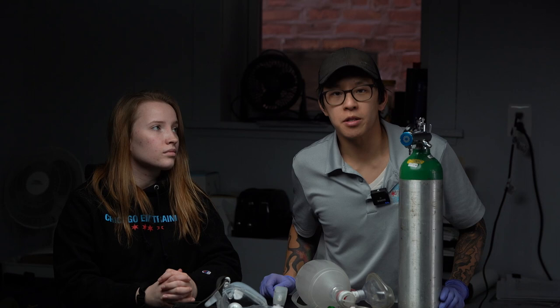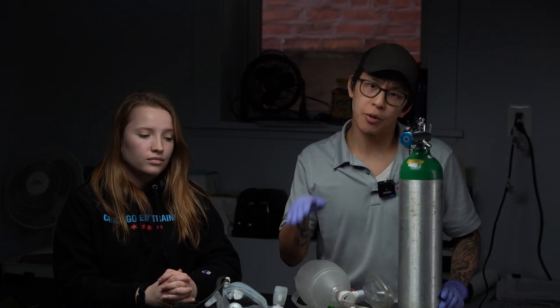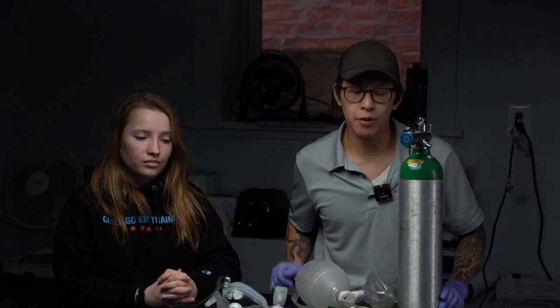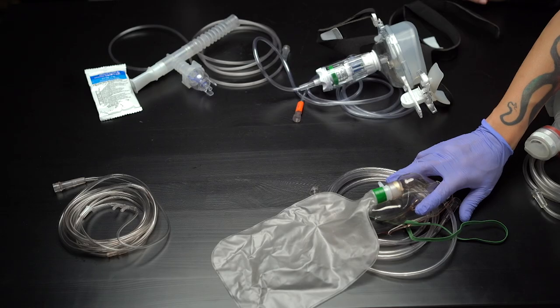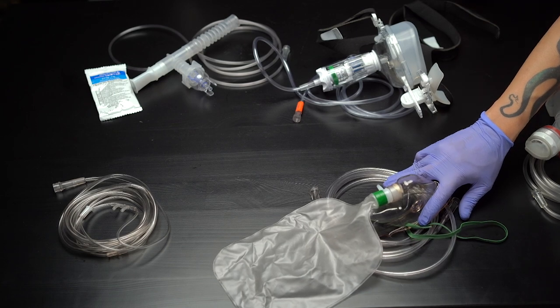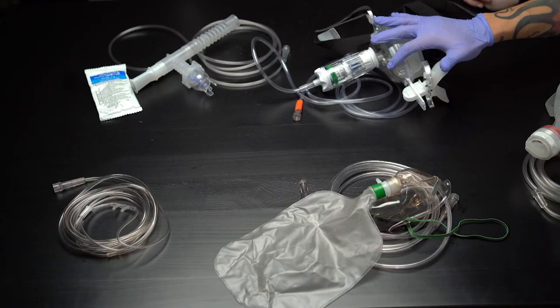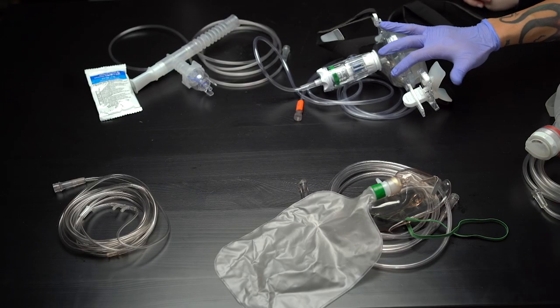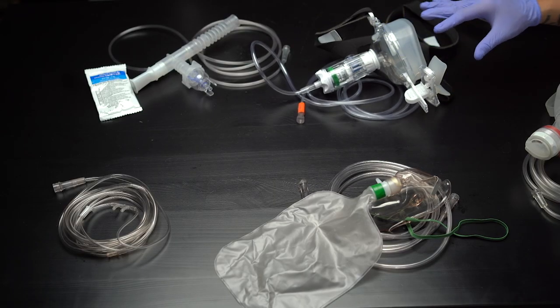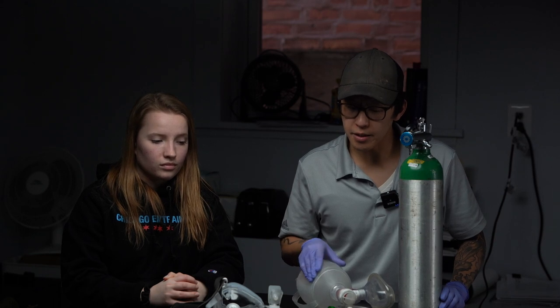Indication number two is going to be severe respiratory distress. Initially when you see someone in respiratory distress, we're going to utilize the non-rebreather mask at 15 liters per minute of oxygen. But if this isn't cutting it, if this isn't doing enough, we can escalate to CPAP.